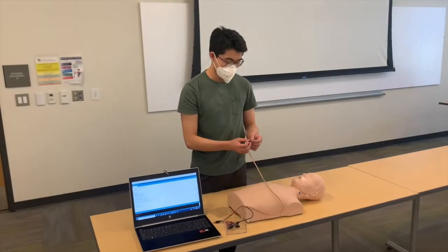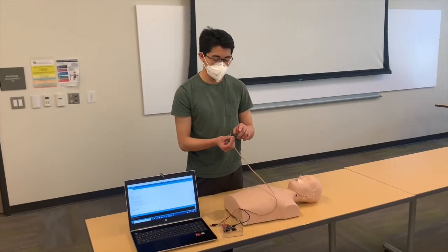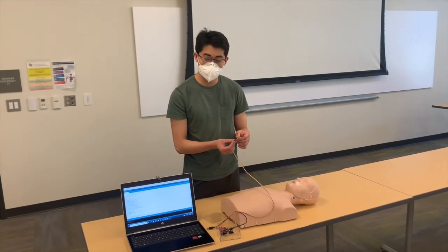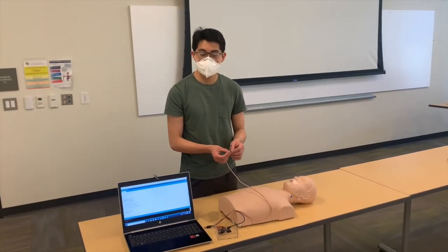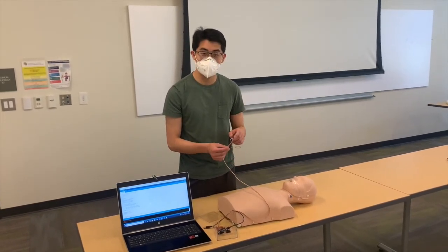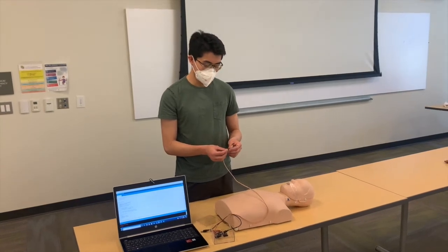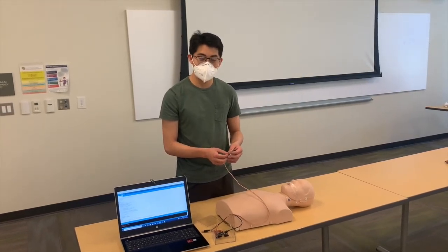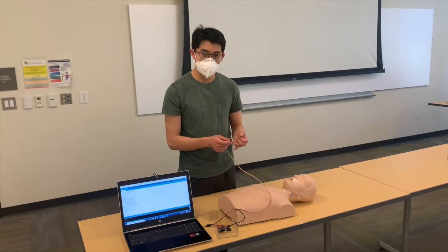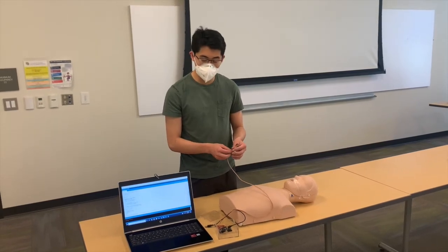So we have two sensors. One is a force pressure sensor, which activates when the person starts doing compressions, and then we got an accelerometer, which after calculations can be used to calculate the displacement, compression rate for our device.